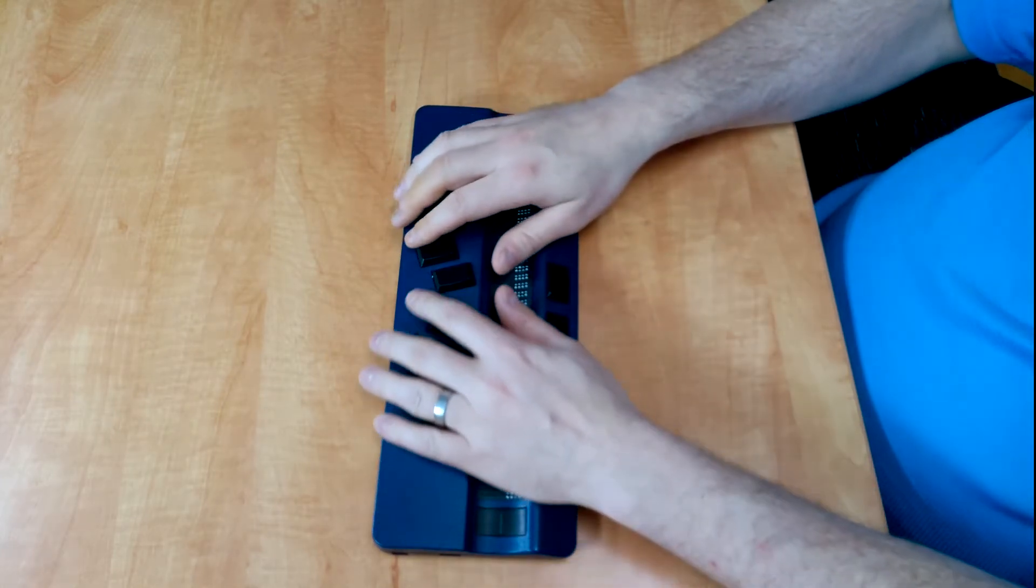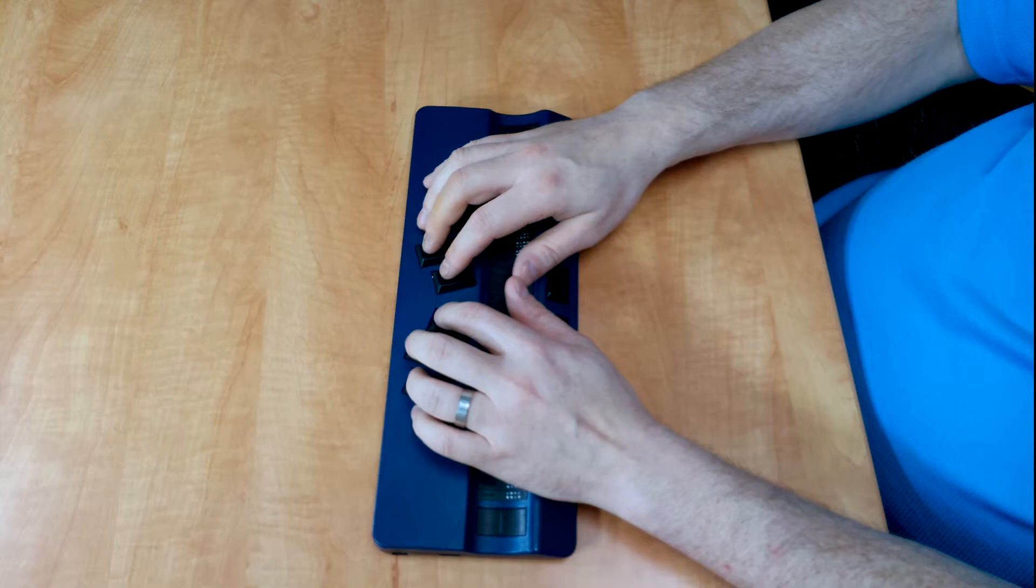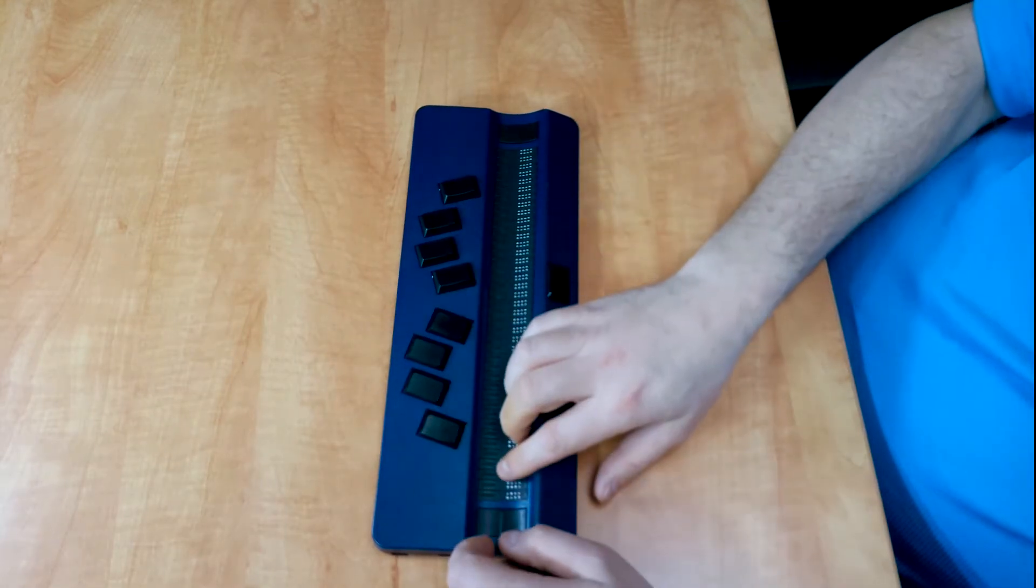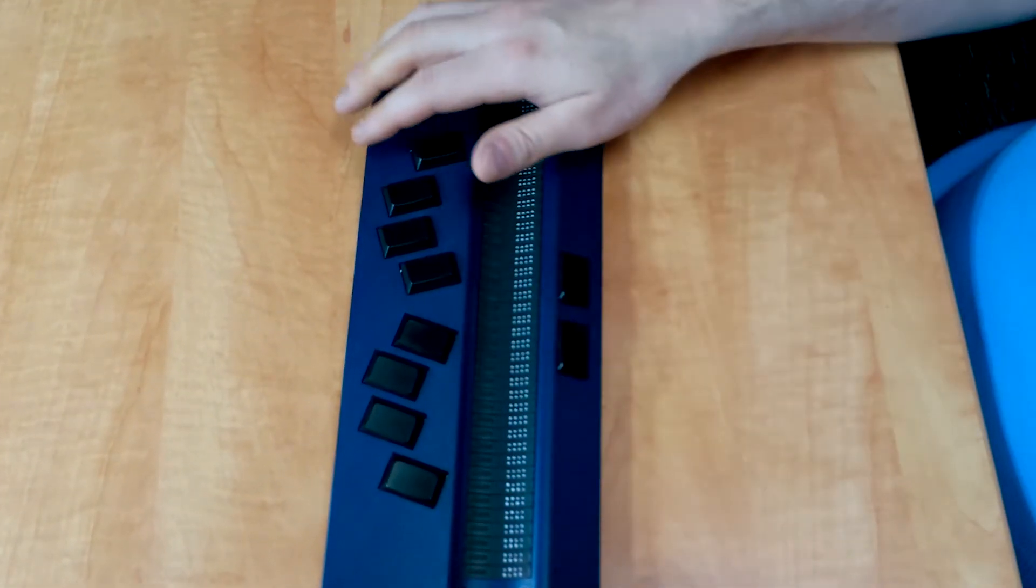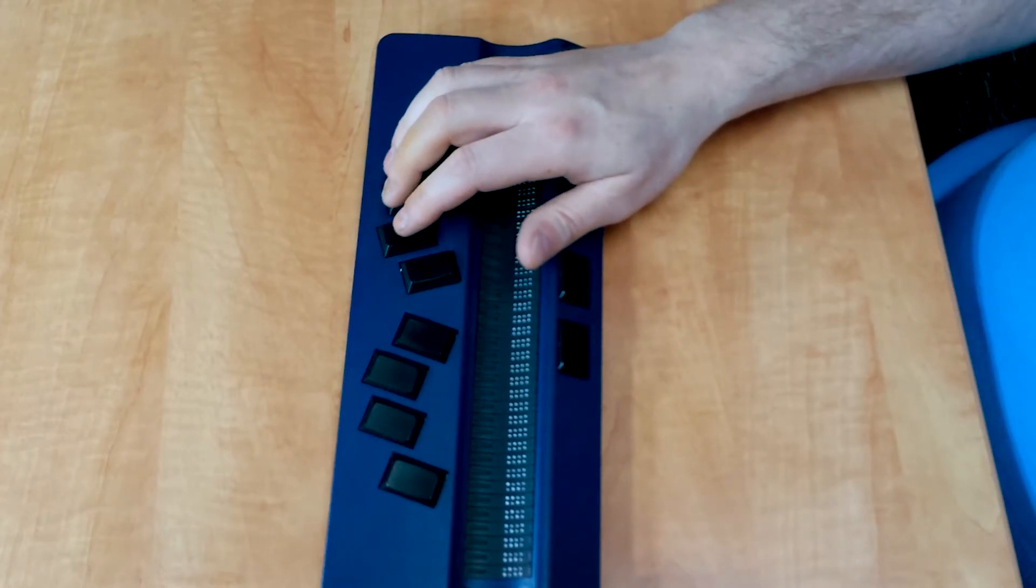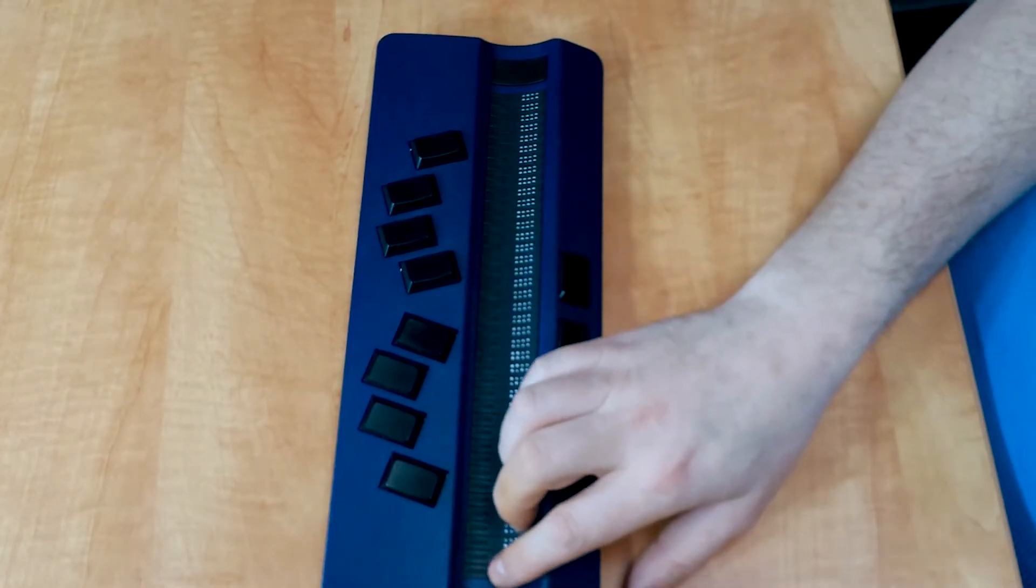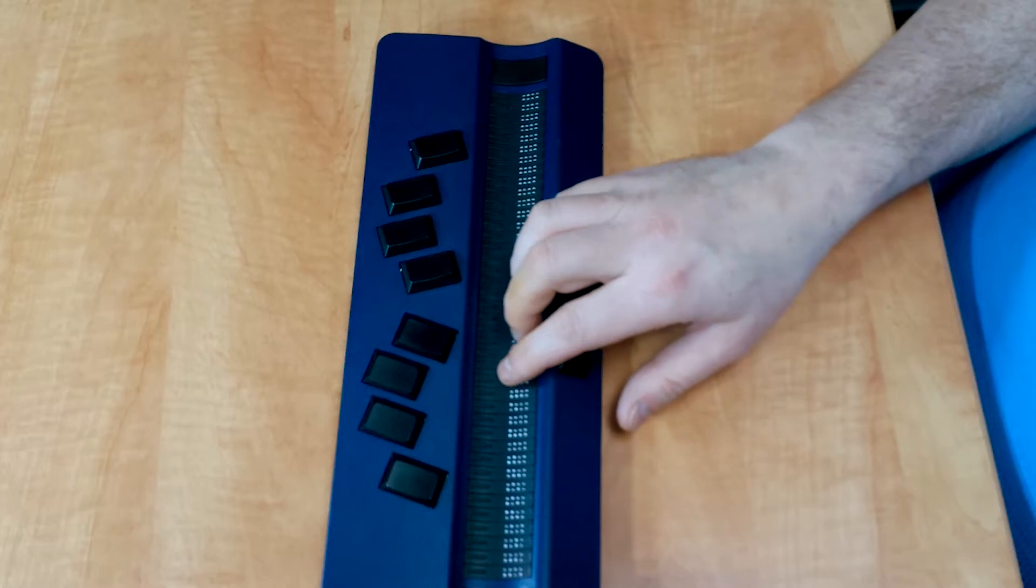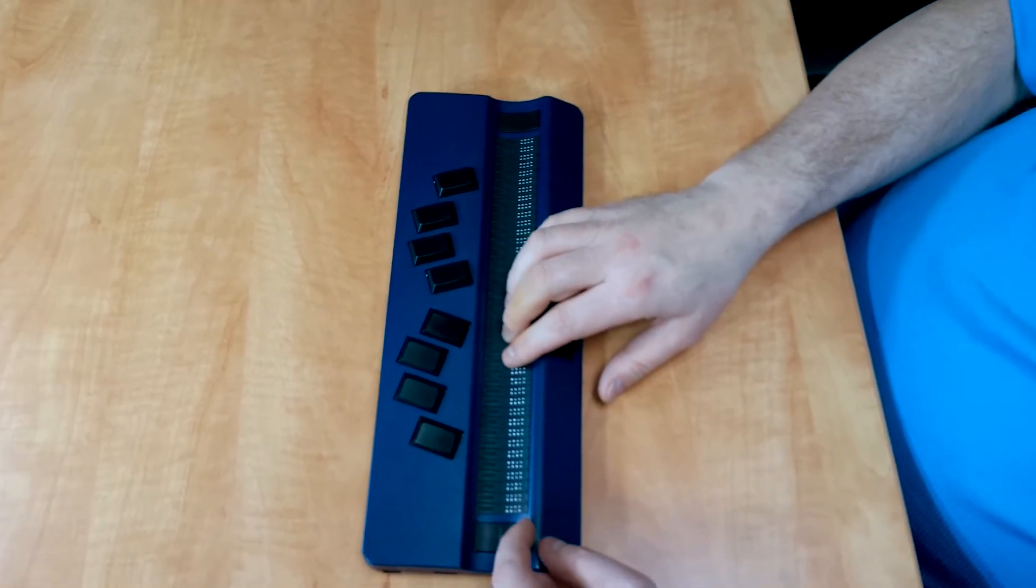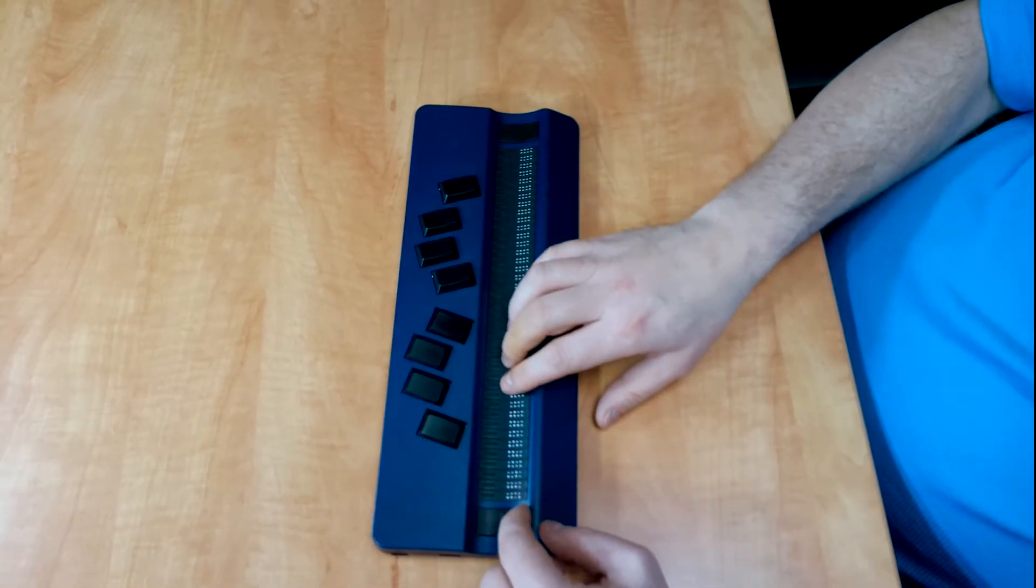I'm going to press the letter O to jump to the Options menu. The Braille display says Options. I'm going to press Enter, which is dot 8. The first item you see is Bluetooth pairing. We're going to scroll down until we get to the Bluetooth On option.